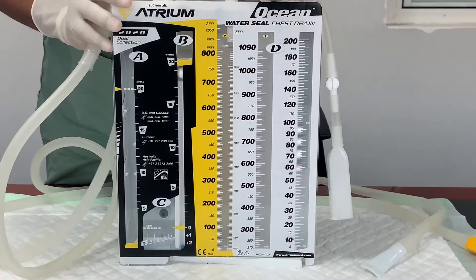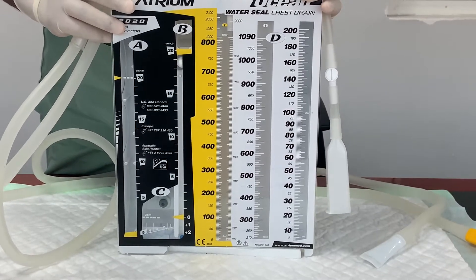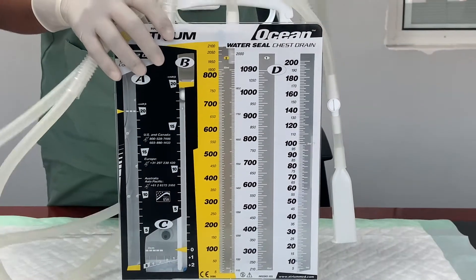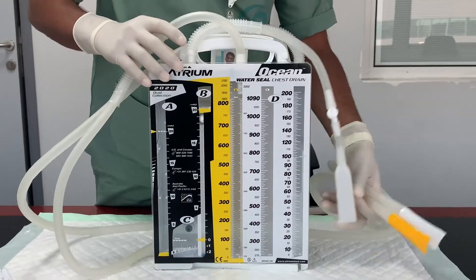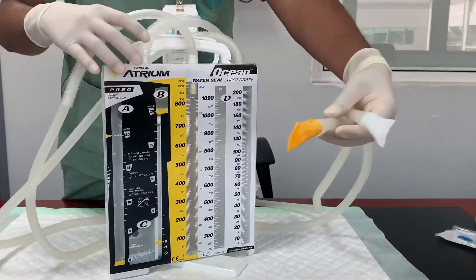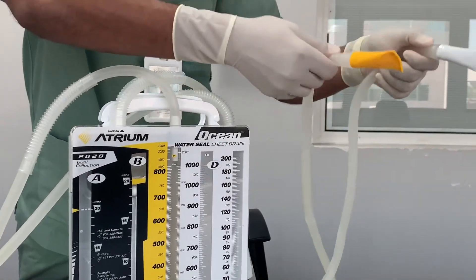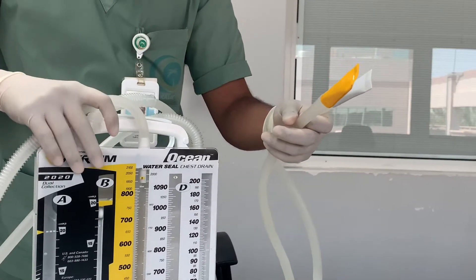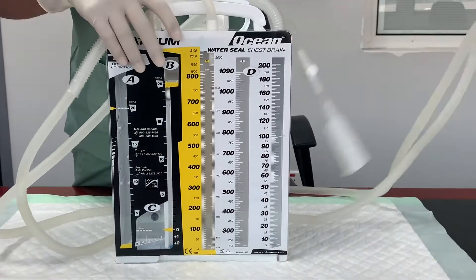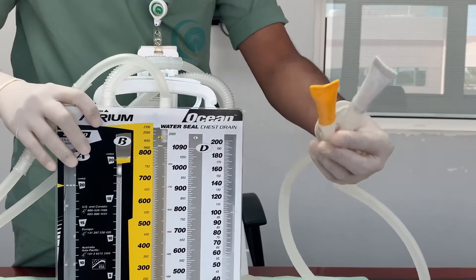I will introduce you to the system part by part with its function. When you open the packet of this atrium dual chamber chest tube drainage system, you will find two tubings — these are the drainage tubes. These drainage tubings are connected directly to the chest tube of the patient. As the doctor is inserting the chest tube, being a nurse you should have this drainage system ready by the end of insertion so it can be connected directly.